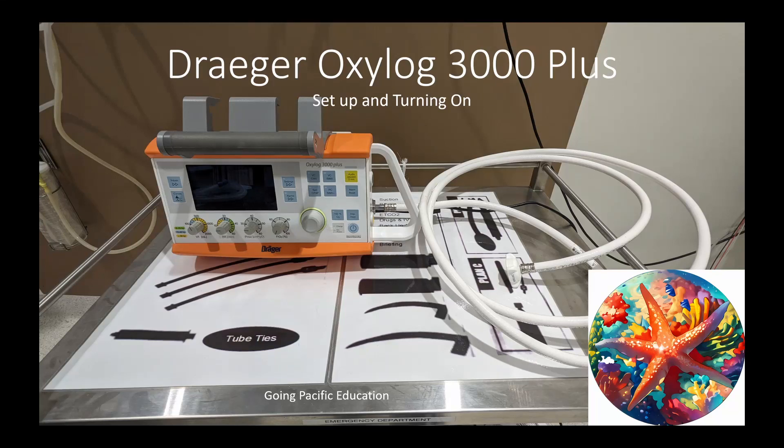Hi guys and welcome to the video. Today we're going to be going over setting up the Draeger OXYLOG 3000 Plus and turning it on.